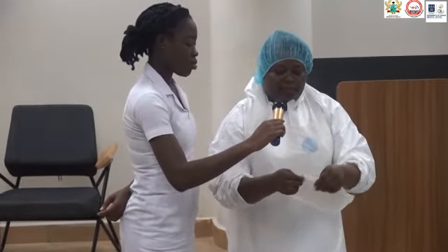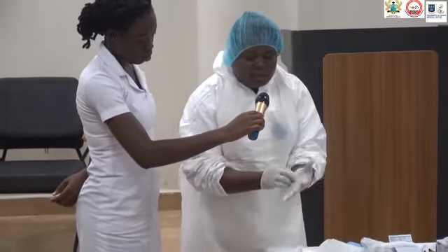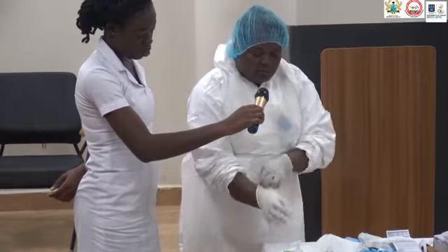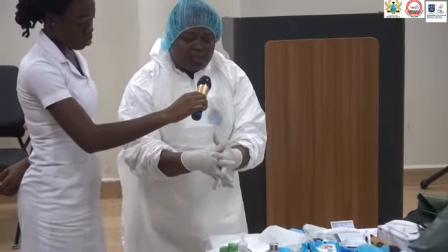I fold and put on two surgical gloves. This glove says we should tear it open, so I'm tearing it. I've checked the date, the expiring date, I've checked the pack is intact, and then I'm going to tear it open. Make sure your fingers are well fitted, and then you check for holes in the glove.